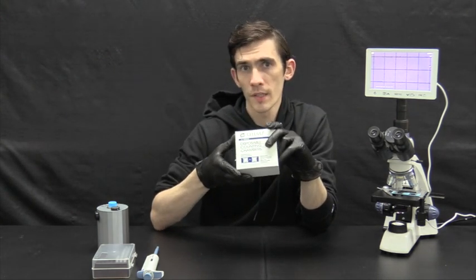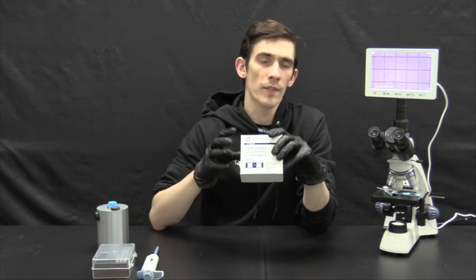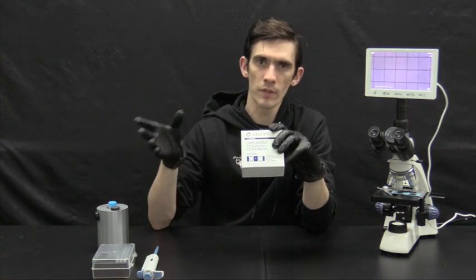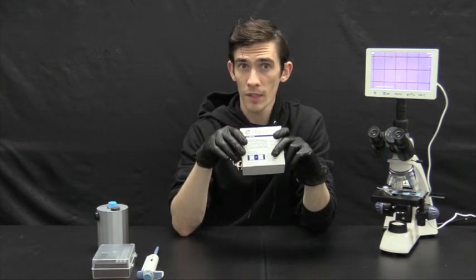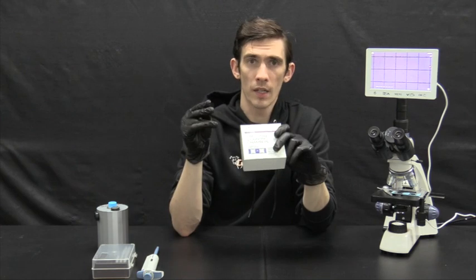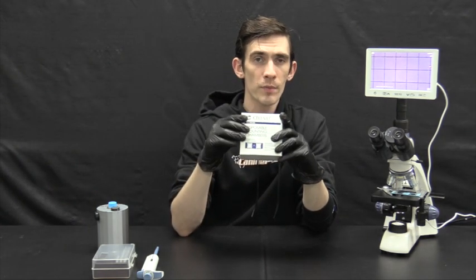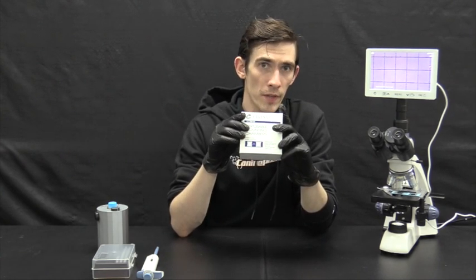This product will help you determine an approximate total concentration of sperms. That is, you're going to get a good look at how many sperms in total exist in your semen sample and help you predict how much extender to use, check the dog's vitality or health. However, it won't necessarily help you distinguish what type of sperm cells they are or how healthy they are.